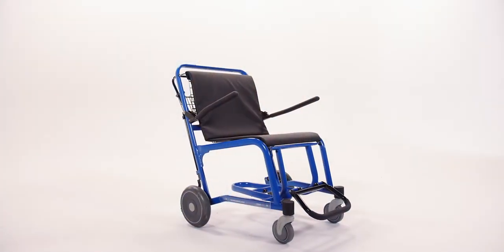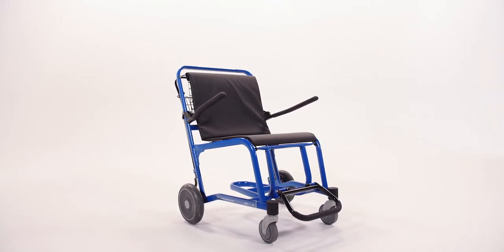Hello and welcome to Staxi, the home of the Ranger, the world's most versatile and safe patient transportation system. Now there's no need for scattered, broken or stolen chairs. With the Ranger, tips and falls are a thing of the past.